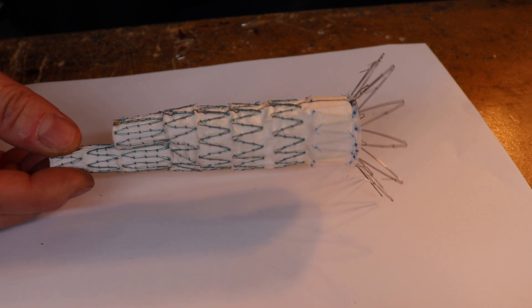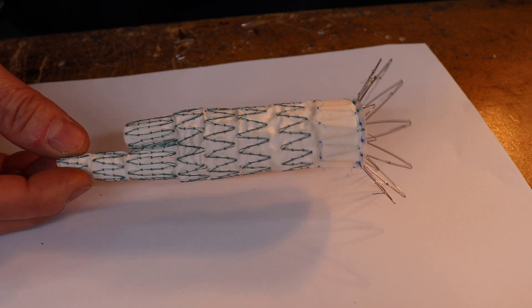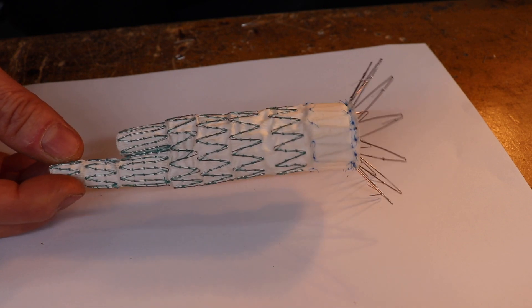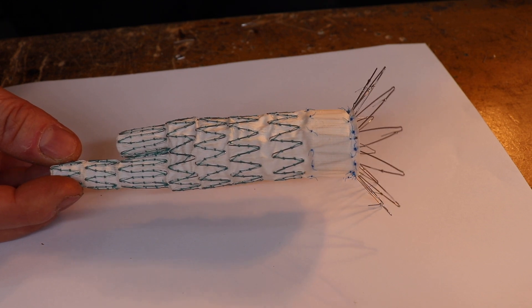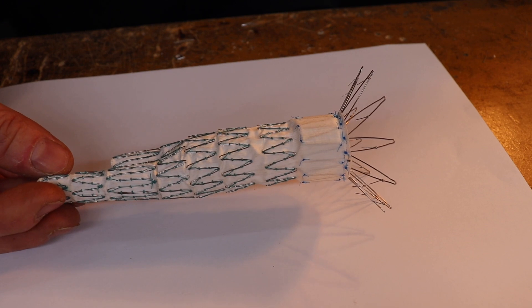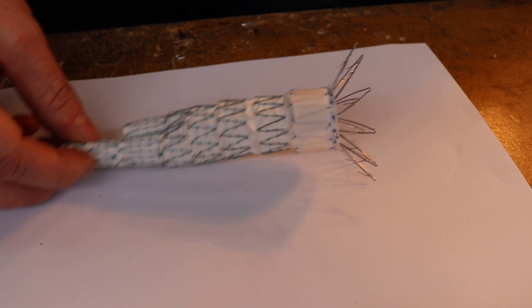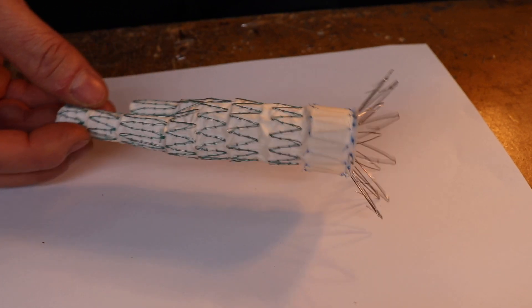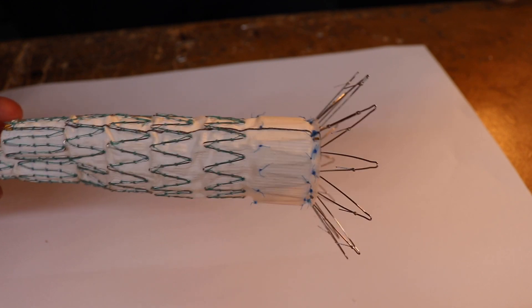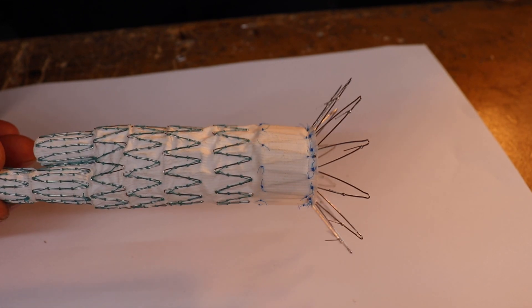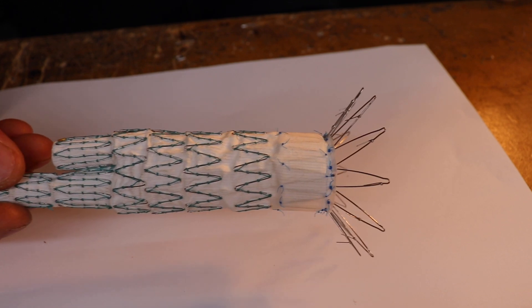It's passed through the femoral artery after it's been exposed. Some people do it without even exposing the femoral artery in the groin, but it carries a little bit more risk. The standard approach is we expose the common femoral artery just below the inguinal ligament, then pass the delivery device into the aorta. This is all done under x-ray control so you can see exactly where you need to place this stent. As you can see, it's made of a type of steel, this is actually called nitinol. It's basically an alloy stainless steel, probably nickel or something like that. Once this is in the human body it lasts forever, it doesn't rust.